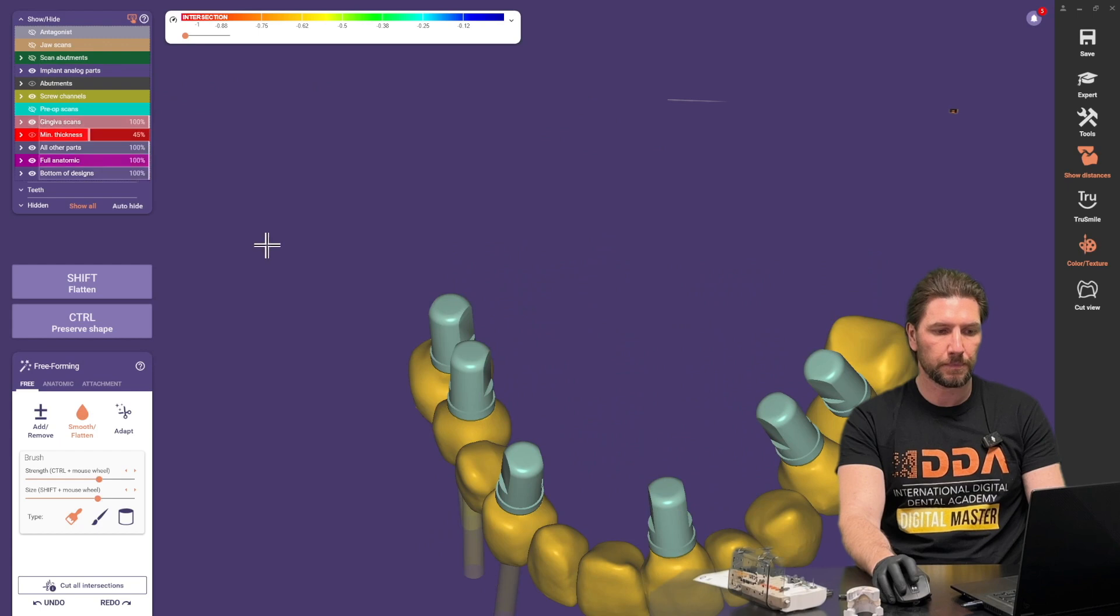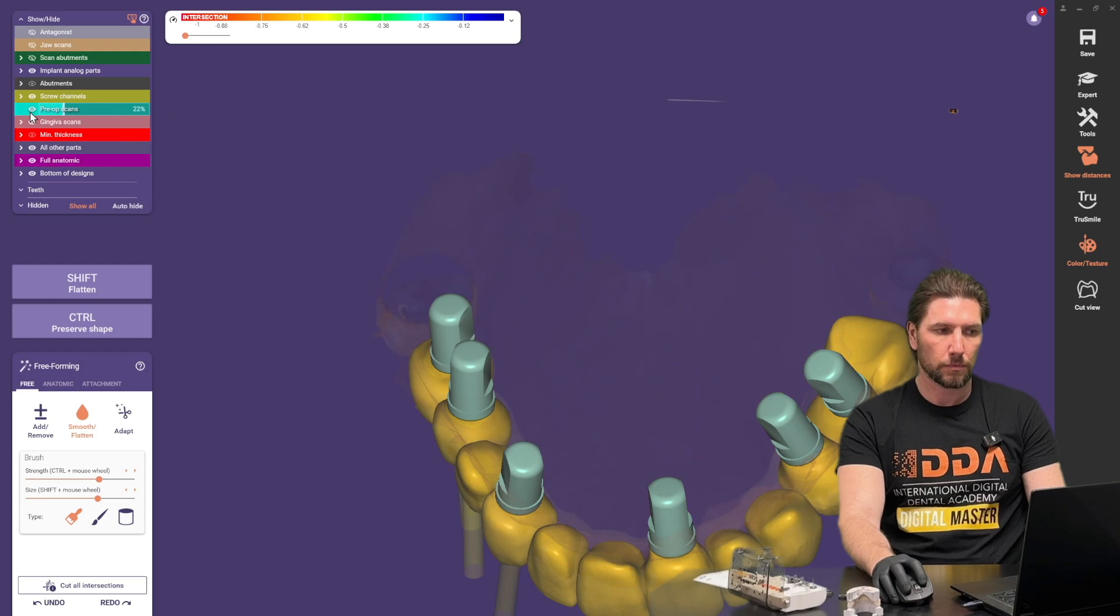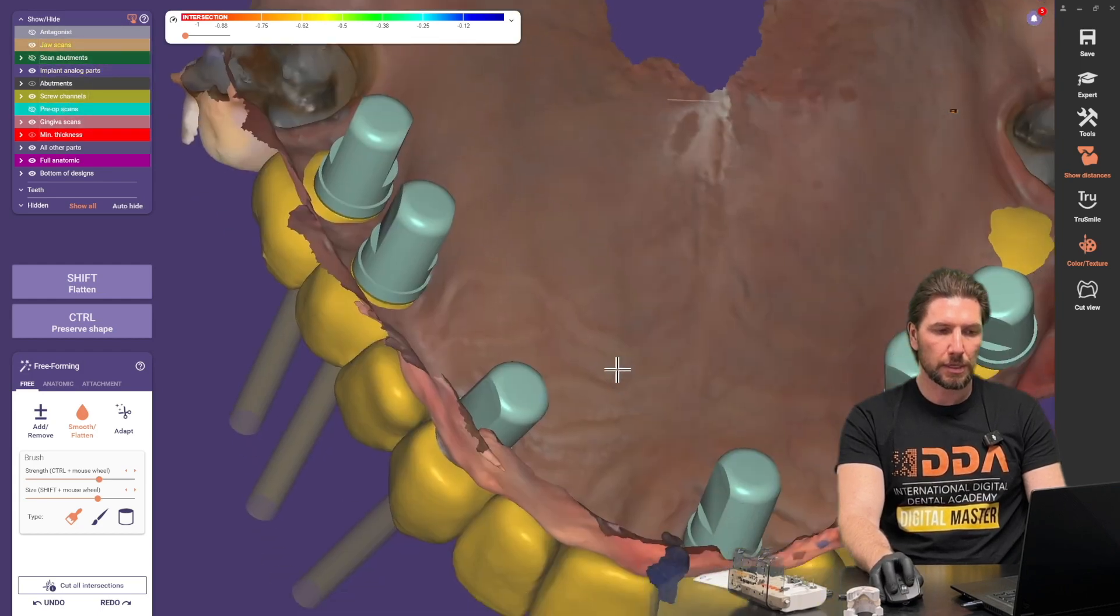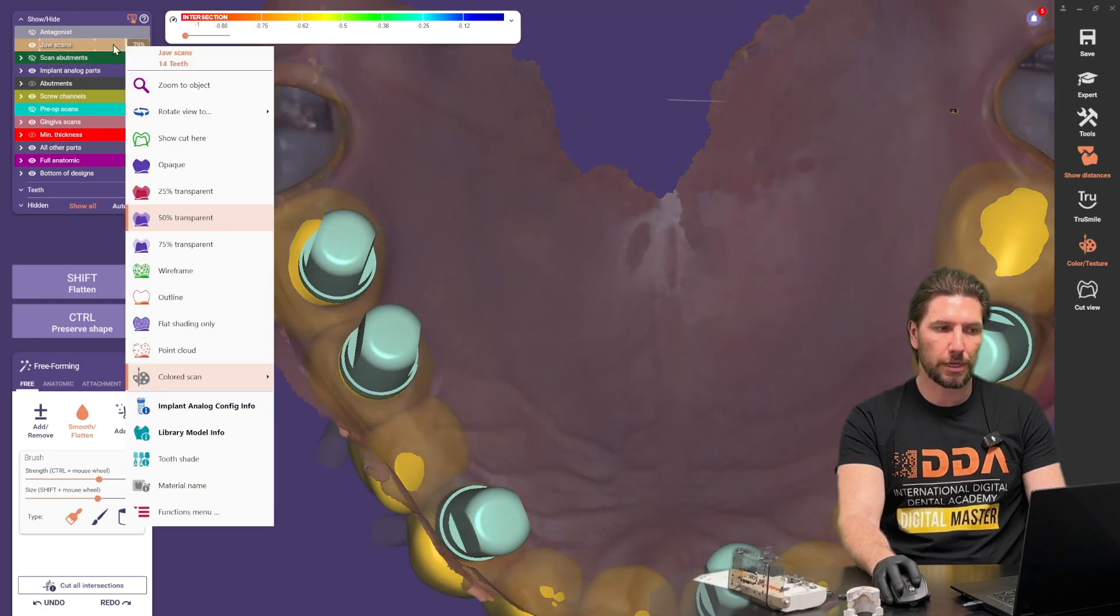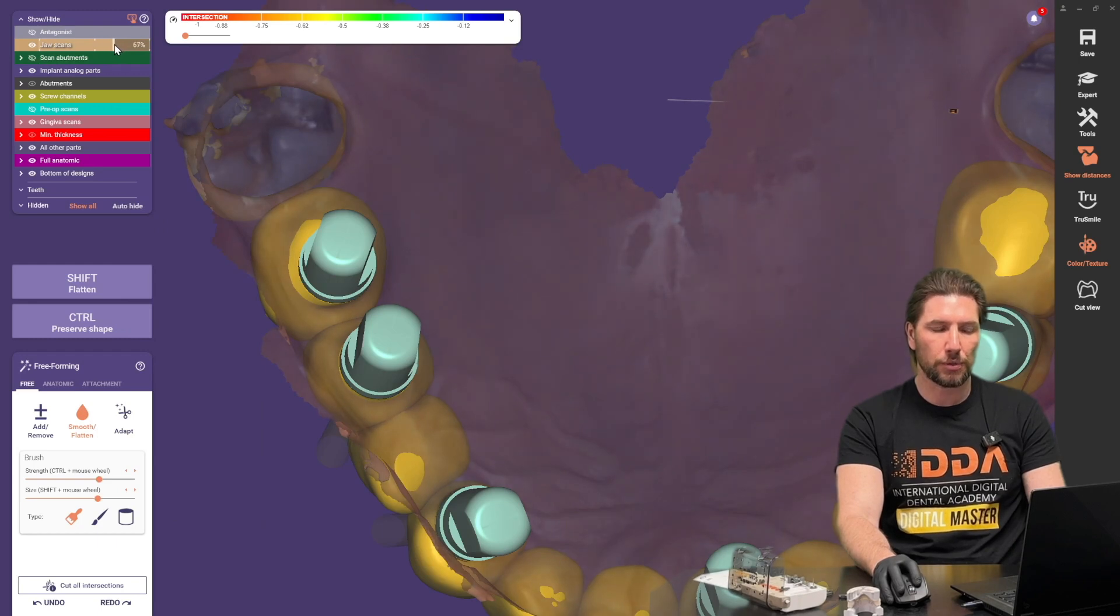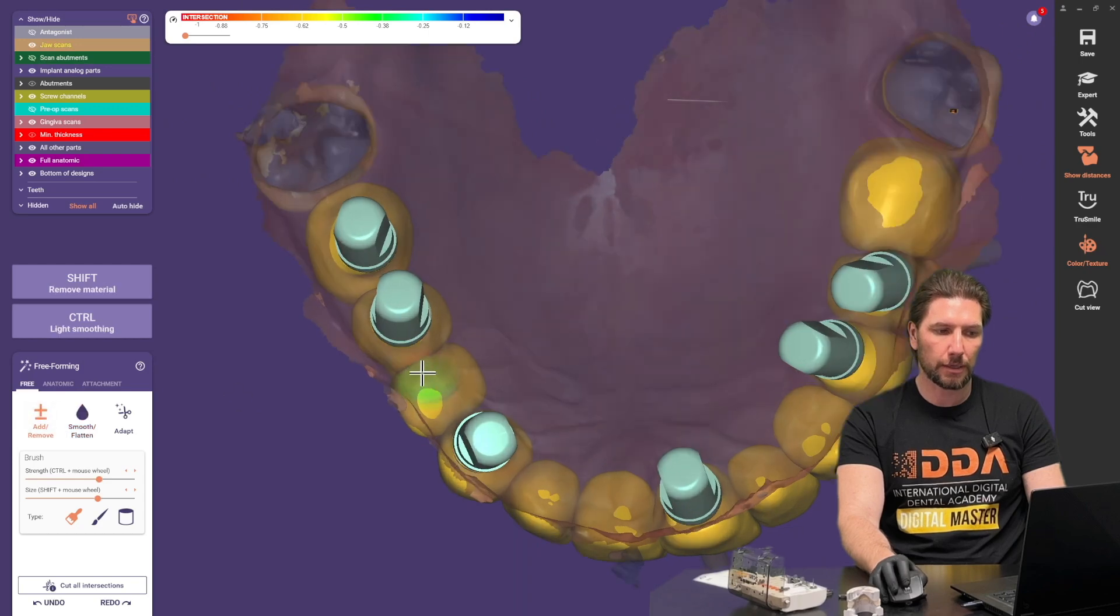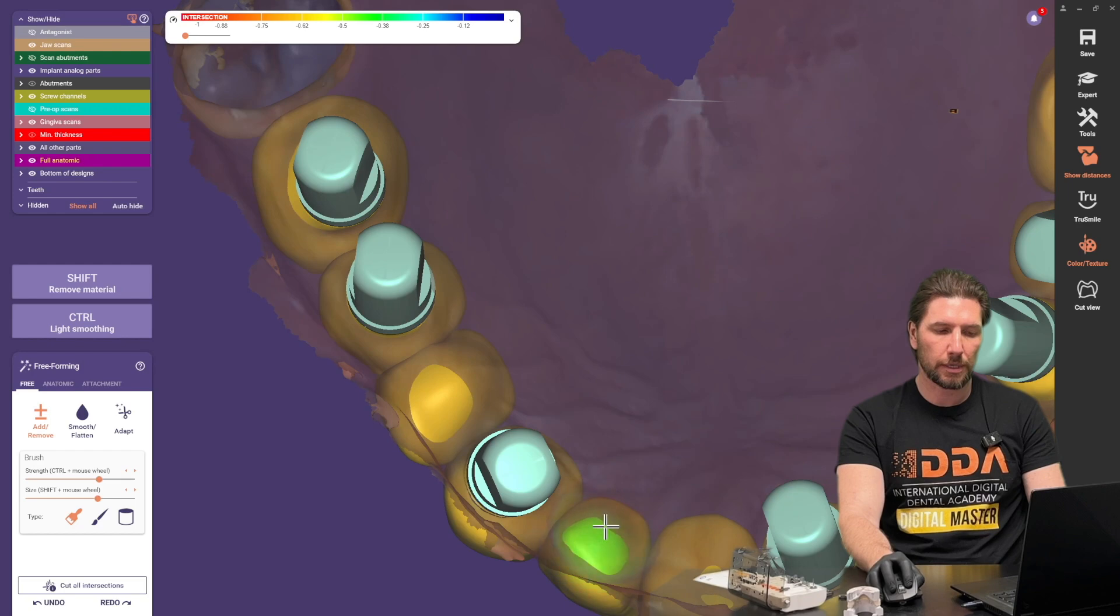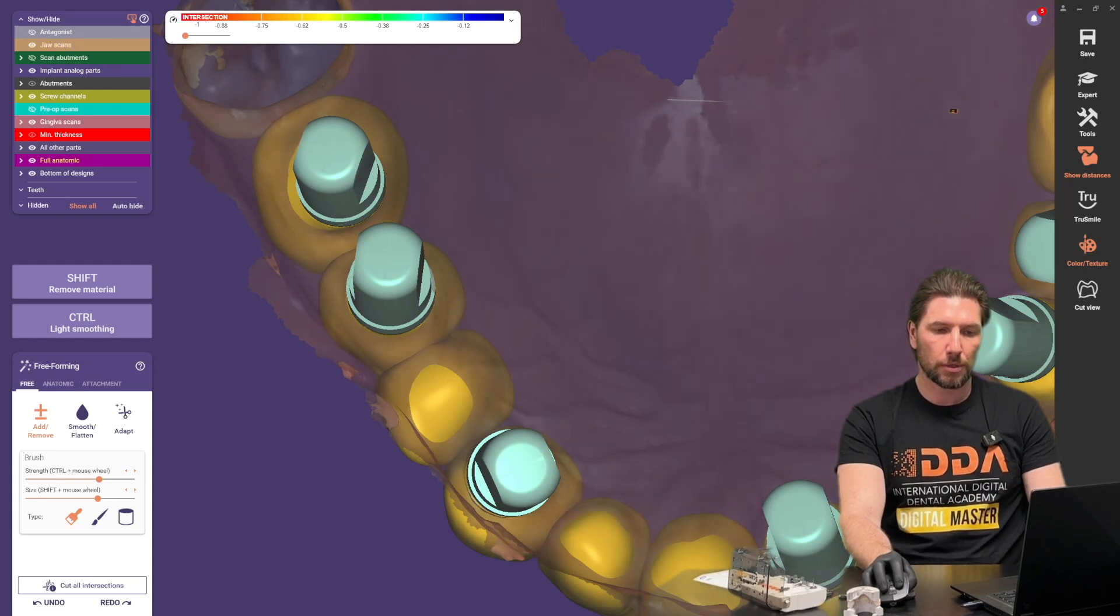So once we've done that the next stage is to bring in the gingival scan again and you can see that this isn't all the way through the gum in a lot of places and we want it to create a little bit of compression there so I'm going to turn this view down just slightly so that then once I've done that I can add a little bit to have this set just a little bit more ovate and into the way of the soft tissue just to compress and hopefully form a little bit of papilla in between each of these pontics and abutments.